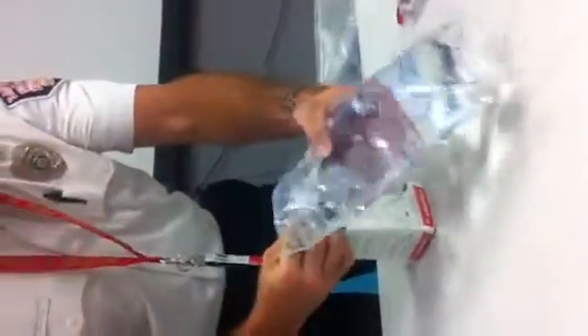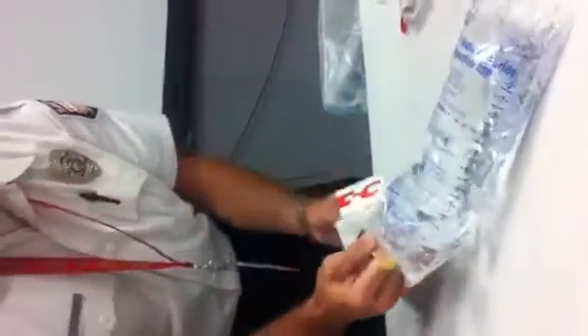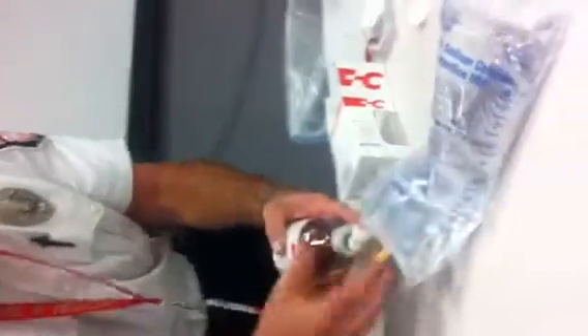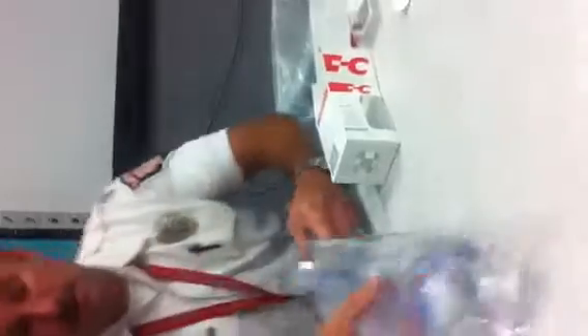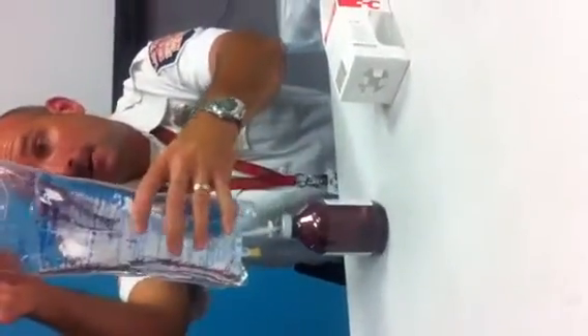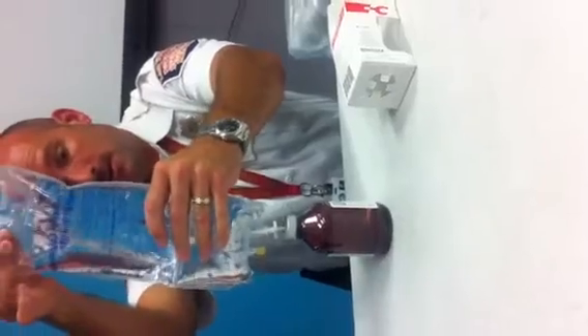There's a fill line when it stands up. So obviously they're not going to be doing it that way — they'll be doing it this way, and there's a fill line located on the side. So they're going to have to spike this bottle. Let's pull it out so we can see. They're going to fill it up — we're going to get about 100 milliliters in there.